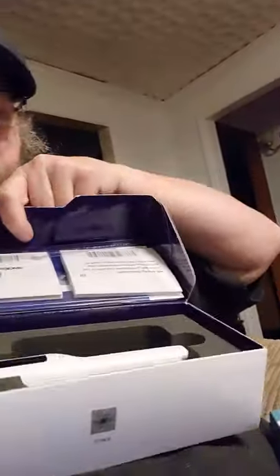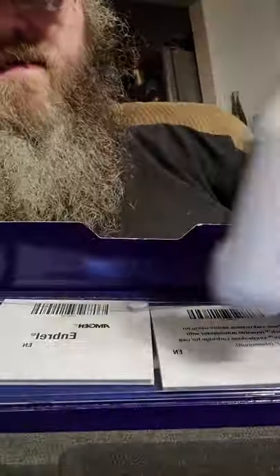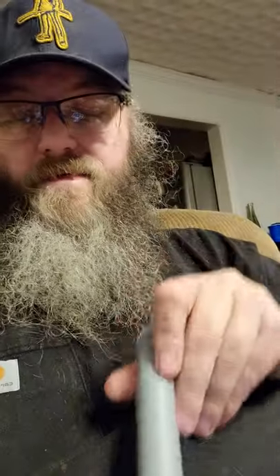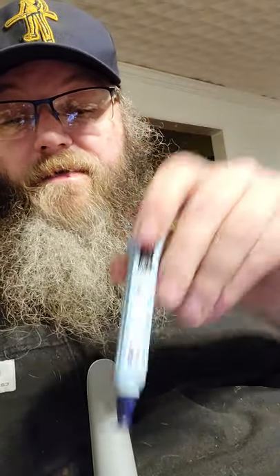Then you want your Auto Touch Reusable Auto Injector. There's the eject button — hit that and it pops open this little door. You want the label side facing out; it's easy to remember, just label out. It should drop right in there. You shouldn't have to force it at all — it only goes in one way properly.